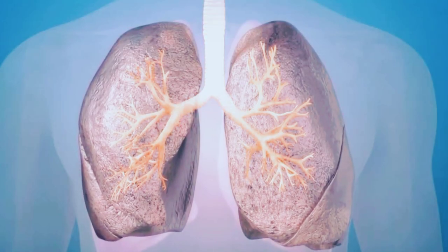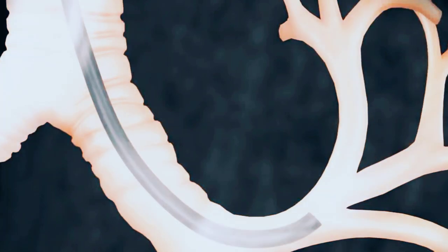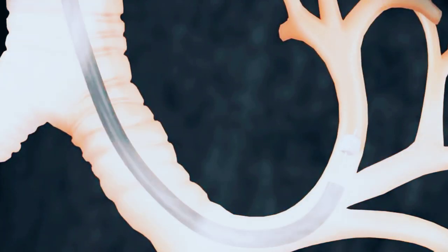minimally invasive and can be performed through a flexible bronchoscope. Prior to valve placement, a calibrated balloon is used to size the airways targeted for valve placement.